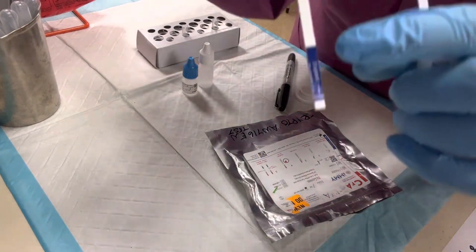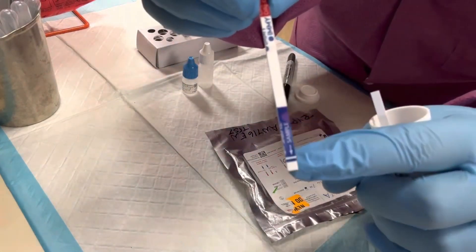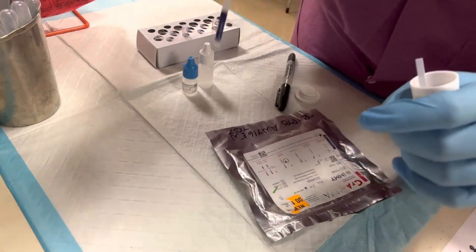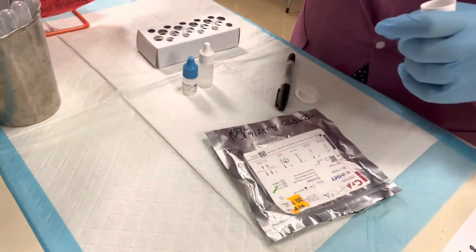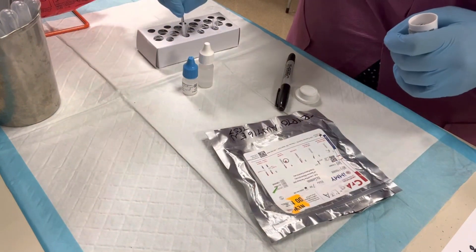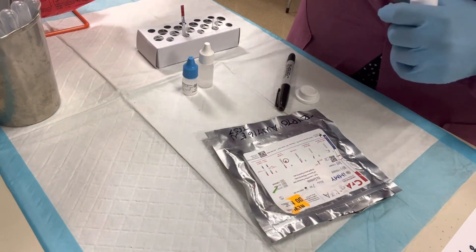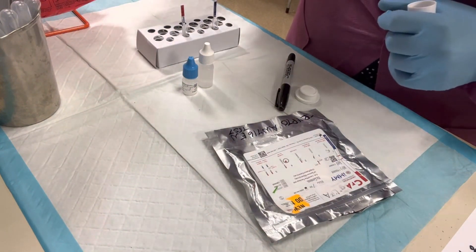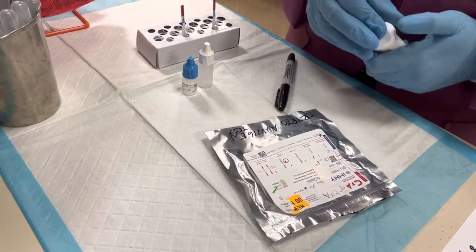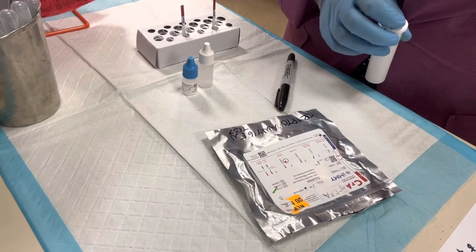The next step is to remove the dipstick. This dipstick has arrows pointing downward on the strip, which means I'm going to drop them down into the patient sample — dropping that one in here and this one in here. Then I'm going to set my timer for 10 minutes, and after the 10-minute mark I will come back to you.